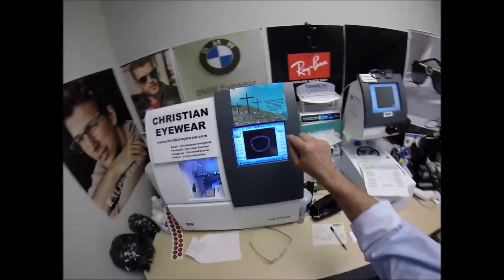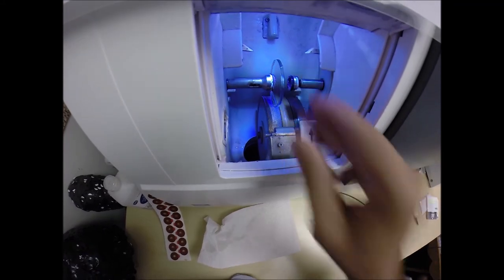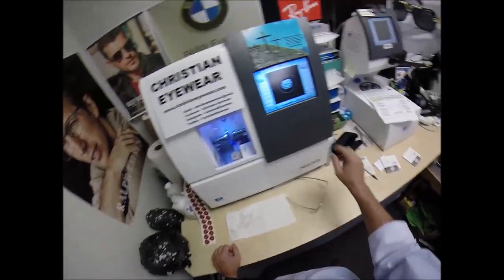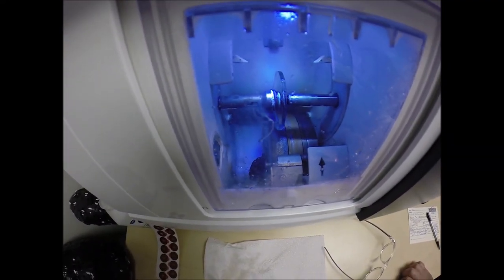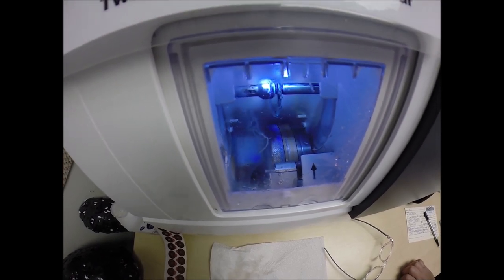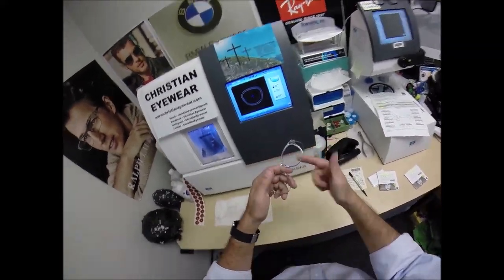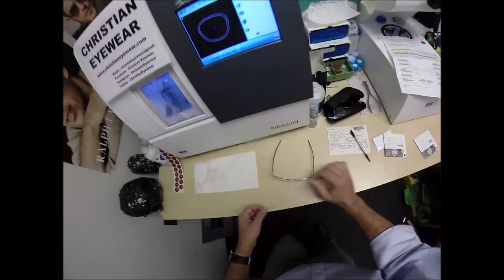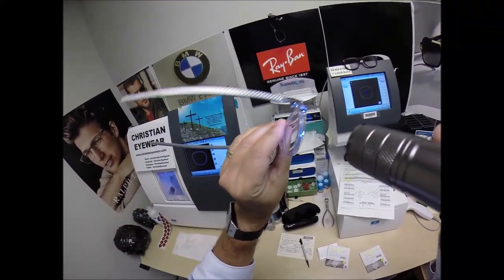Go ahead and start cutting the left lens. We're going to flip that over to L, press the sticker on there firmly, place the magnet into the Chuck — the Charles, the Chucky baby. Today I'm calling it the Gary. Hit the green start button. The door closes, the clamp shuts. The lens is going to be traced by two white styluses, making sure that it's large enough to fit into the left side of the frame. And of course, measuring the thickness to know where to place the bevel so you have the least amount of edge thickness showing. Look at that, Gary — you've got no edge thickness there whatsoever.